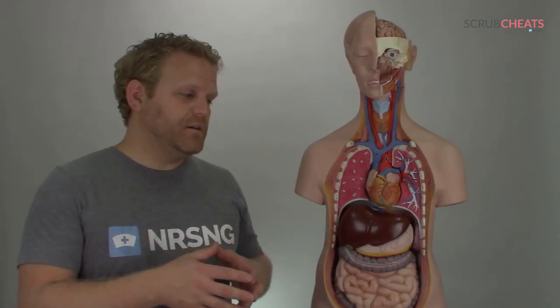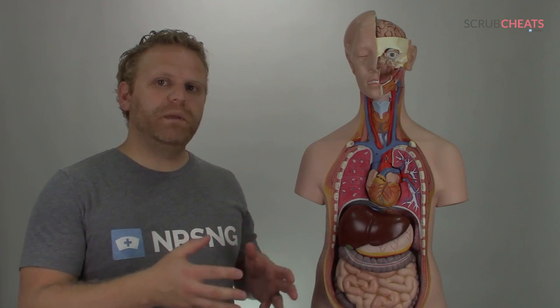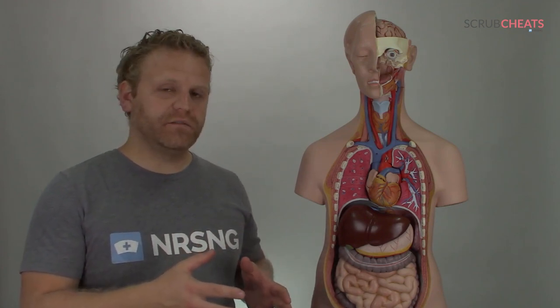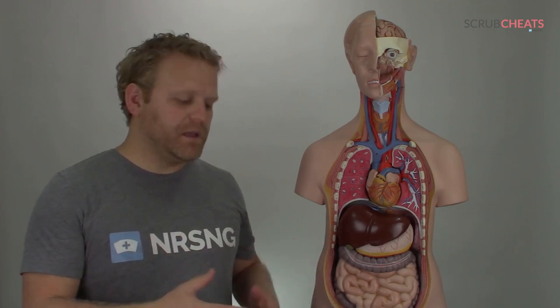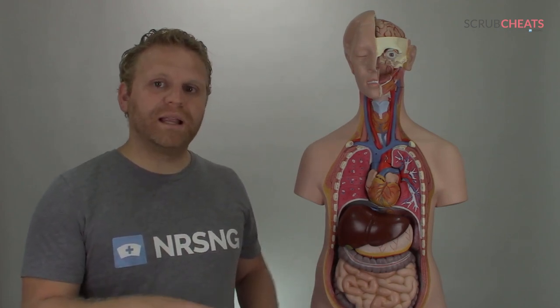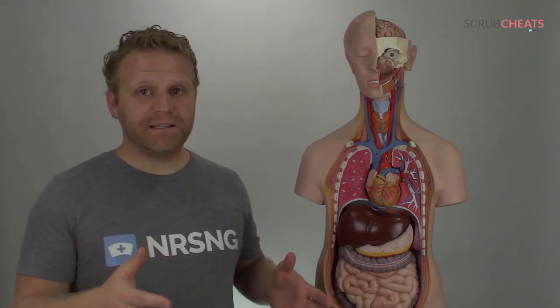Okay, we're going to talk about hierarchy of O2 delivery. This is one of my favorite cheat sheets and it's one of the ones that helped me most as I was beginning on the nursing floor. We do go into much more detail with this inside the NRSNG Academy, but this cheat sheet is going to help you greatly. So let's simplify oxygen delivery devices.